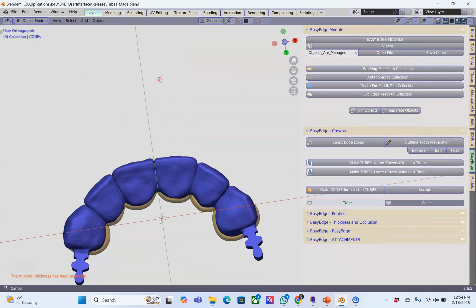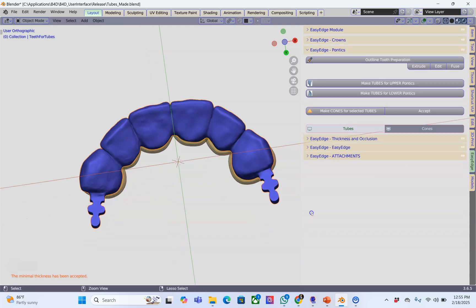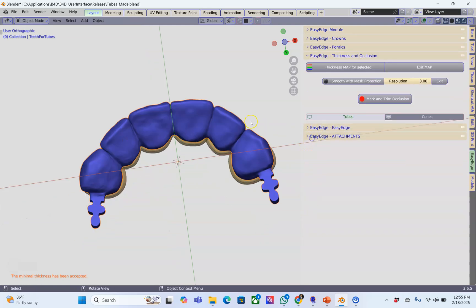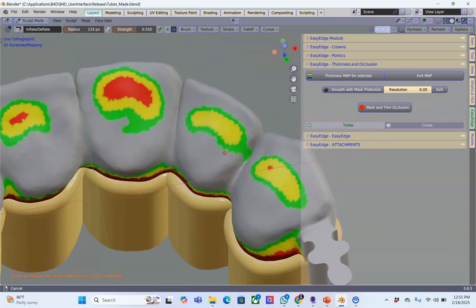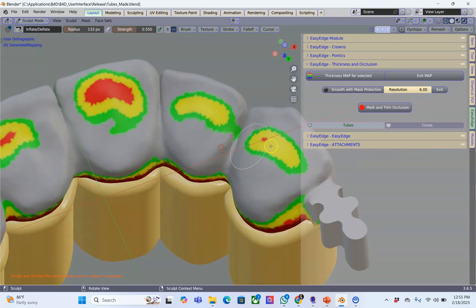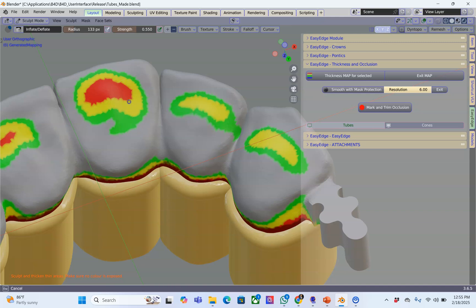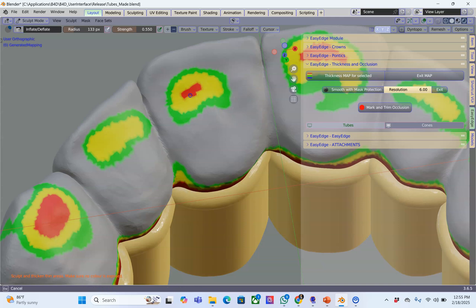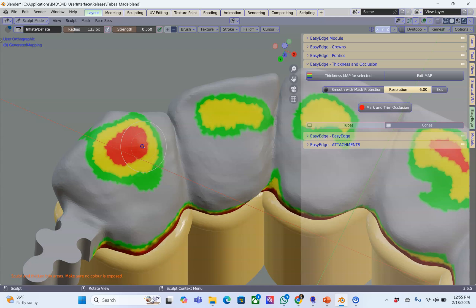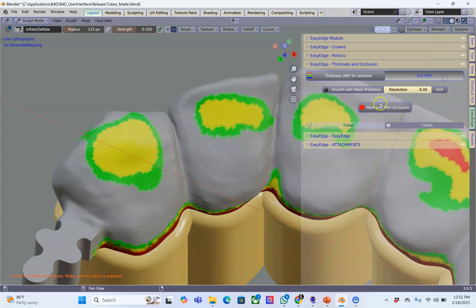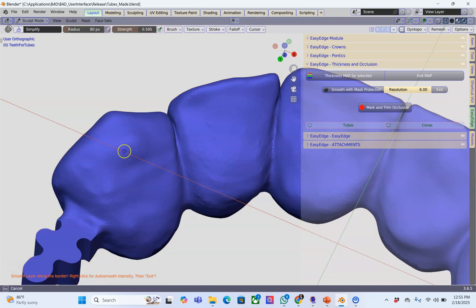Next step is we're going to select it, go to the next menu, the thickness, and then check your thickness. This can be quite important especially when you've got very thin crowns. Here we can see the thickness, this is a measure between the orange cones and the outside of your actual bridge. I'm making it a little bit thicker. I don't have the antagonist for this case so I need to be careful otherwise I'm going to create a high bite. I'm going to take care not to move it out of occlusion, then exit and quickly smooth it where I've expanded the mesh outward.